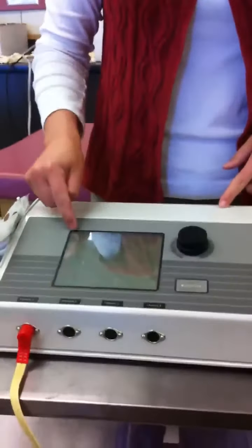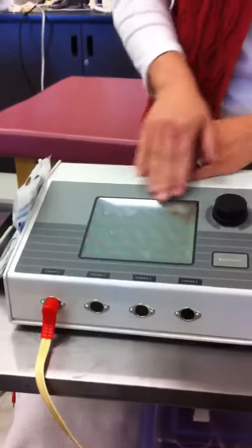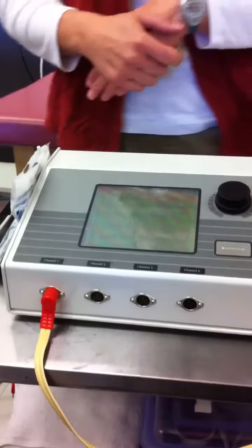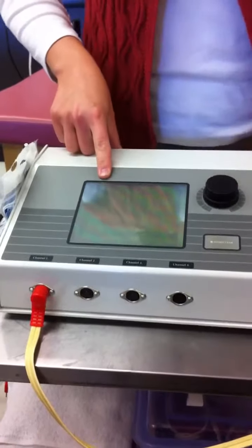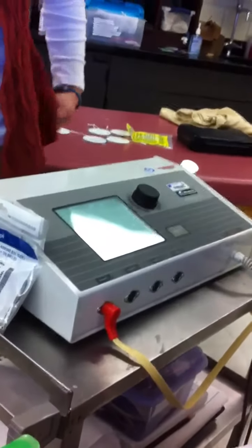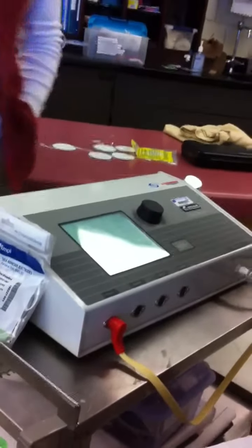of what's going on. But each one of the channels has its own individual line on the screen. 1, and then there's a whole bunch of buttons, 2, a whole bunch of buttons, 3, etc. Okay? So, Ani, you're sitting right there. I want you to press channel 1. I want you to press the button that says quick 1. Okay, now, I want you to tell me what electrical modality is that?